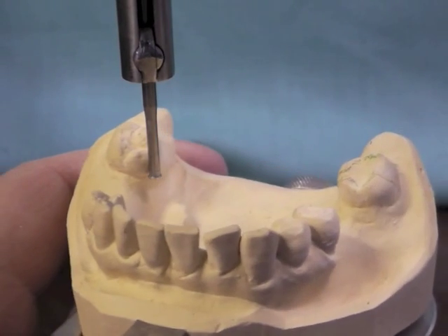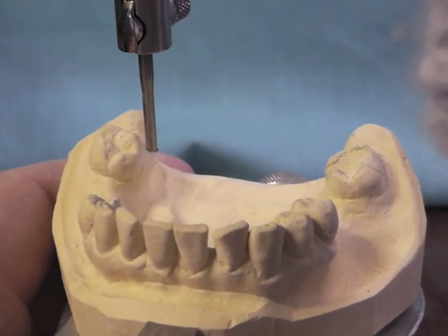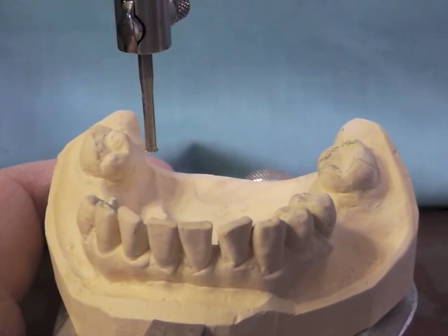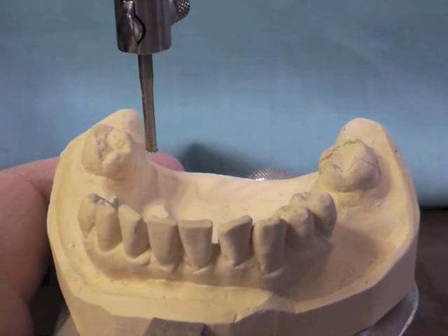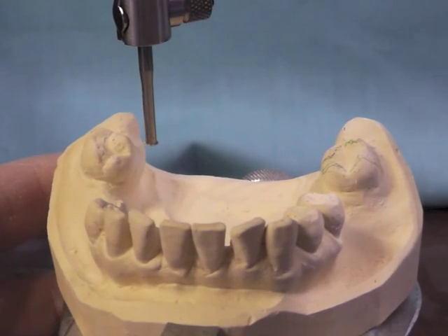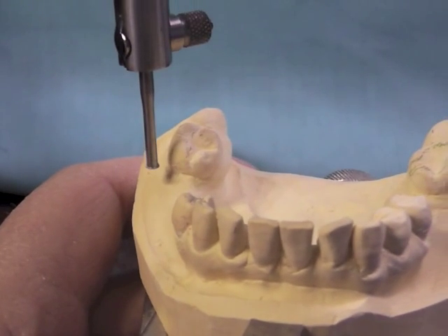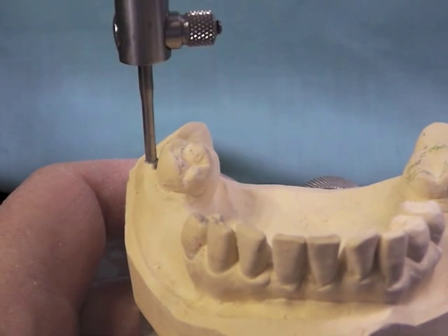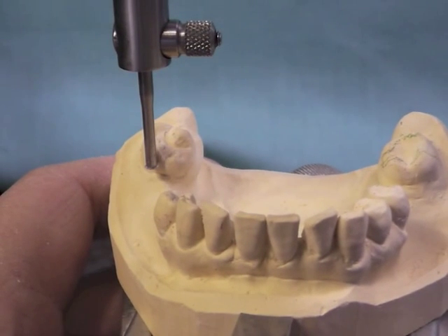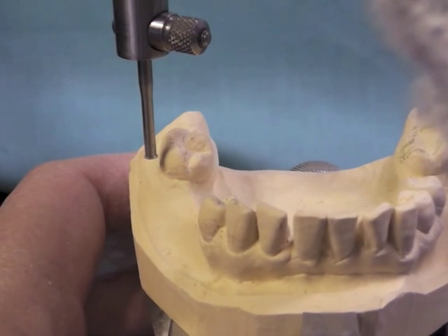When I look at this survey line, basically that's going to happen here. I want to use my deepest undercut in order to place the direct retainer tip in that position. Because if you think about it, the reciprocal component has to be all above the survey line. And it looks like our survey line would be all the way down to the gingiva over here, which allows us to place that arm all above the survey line and to keep it way down on the middle third of the tooth.